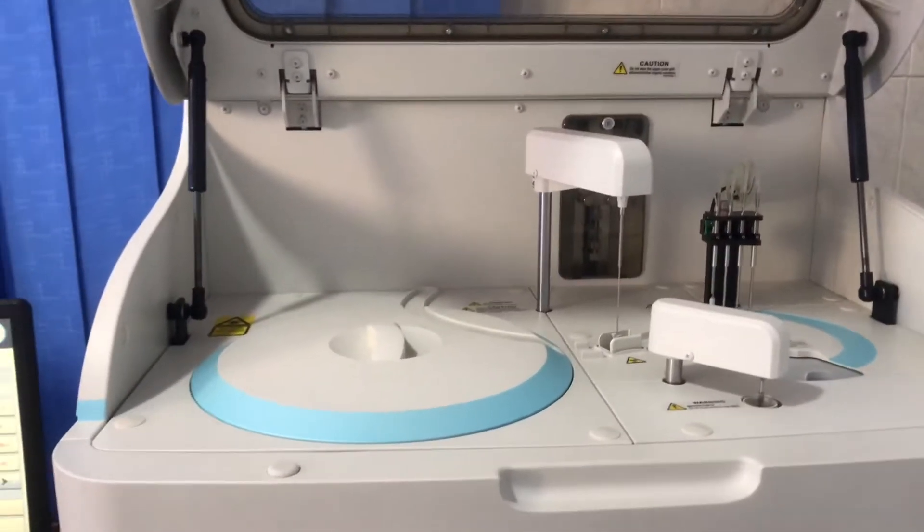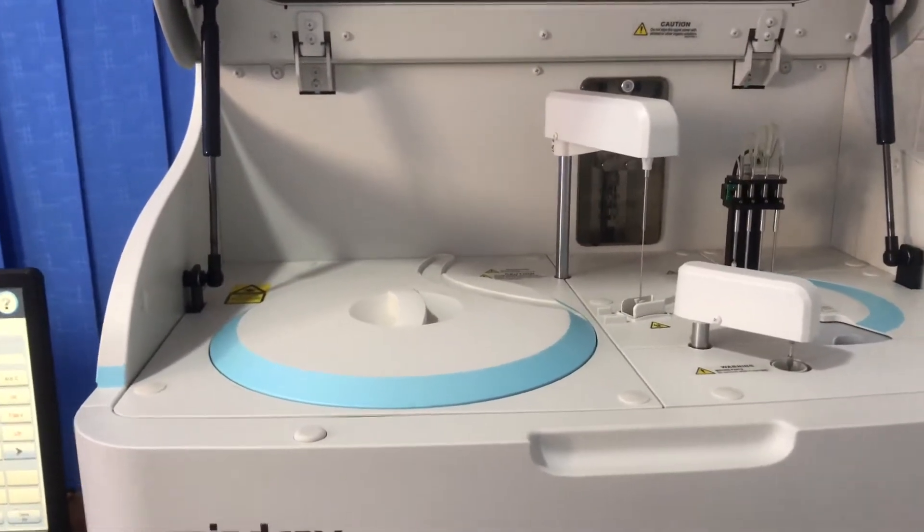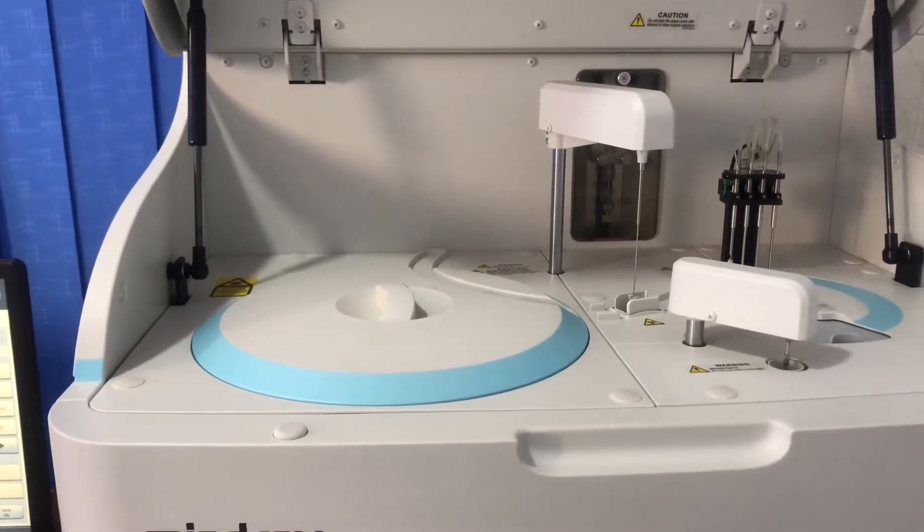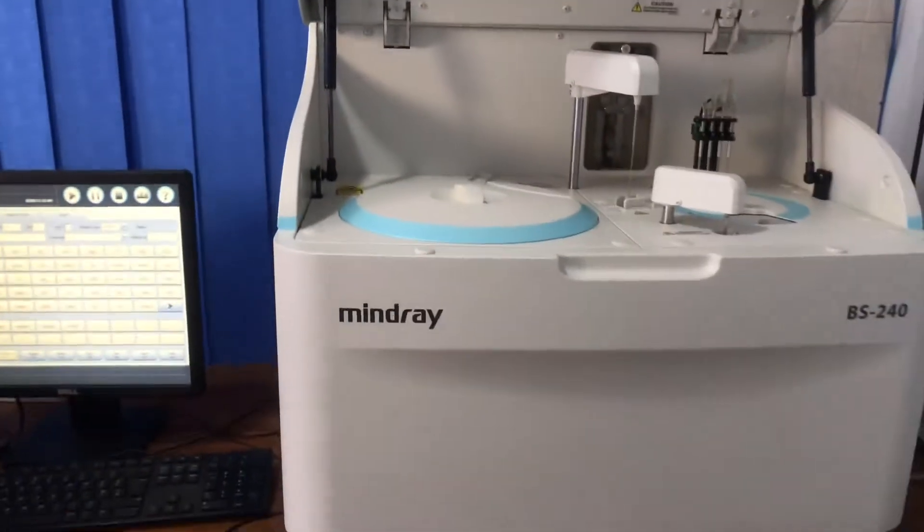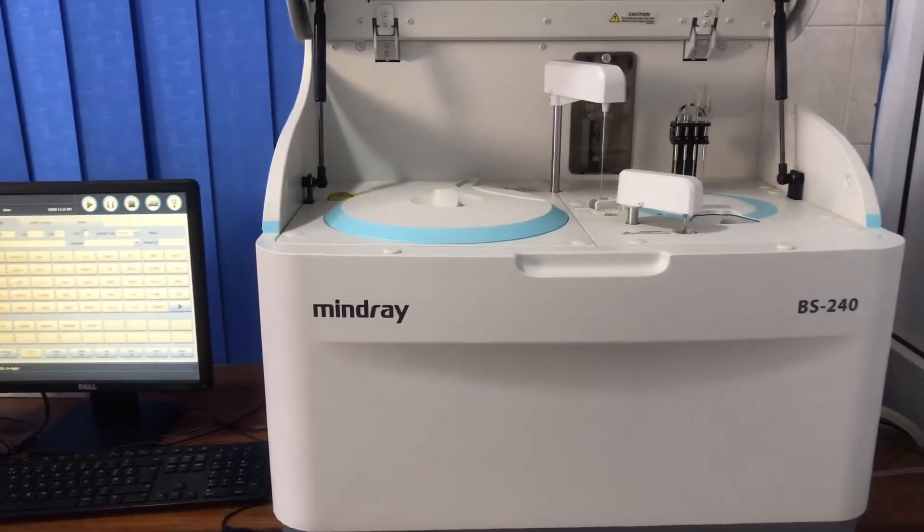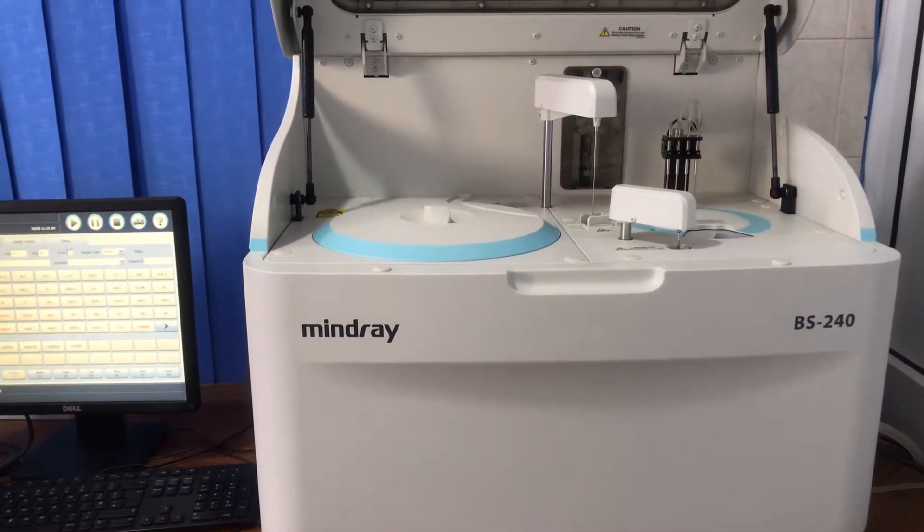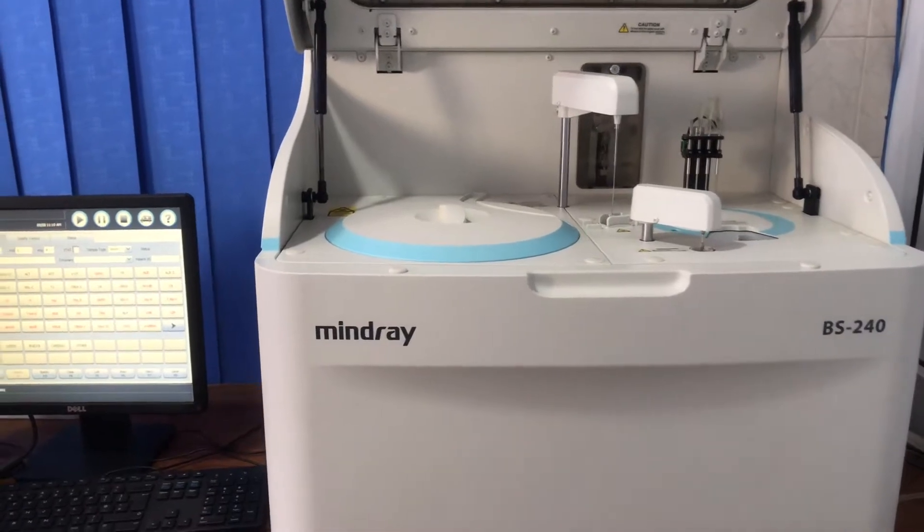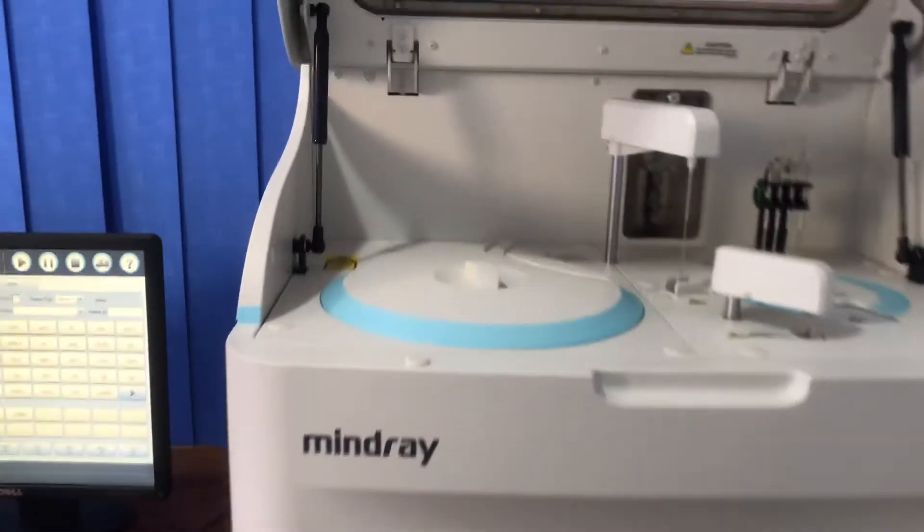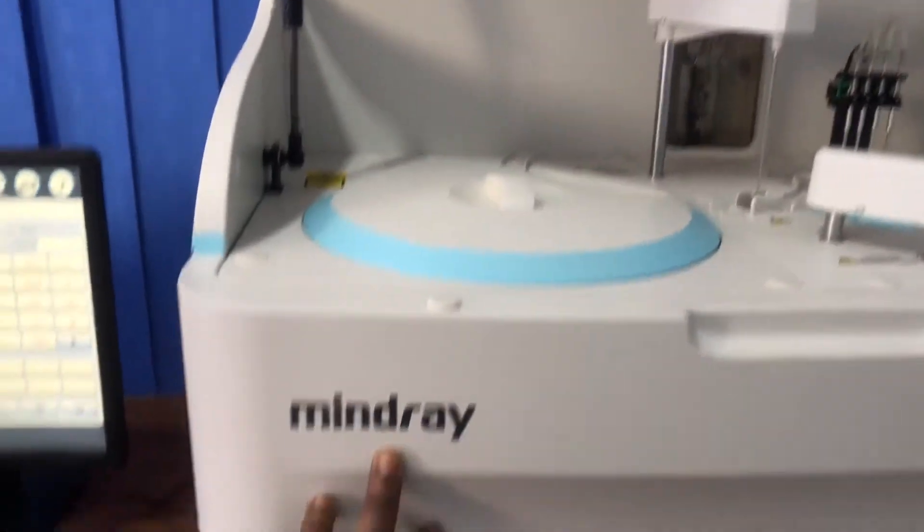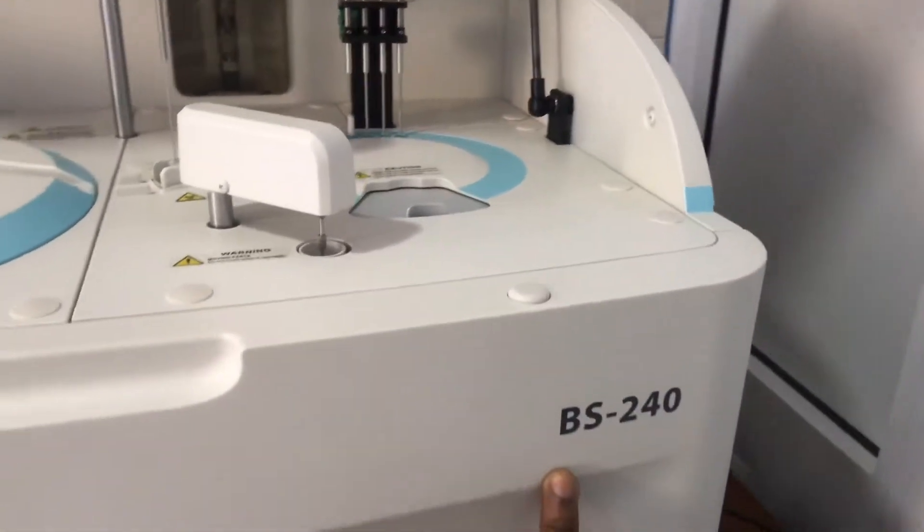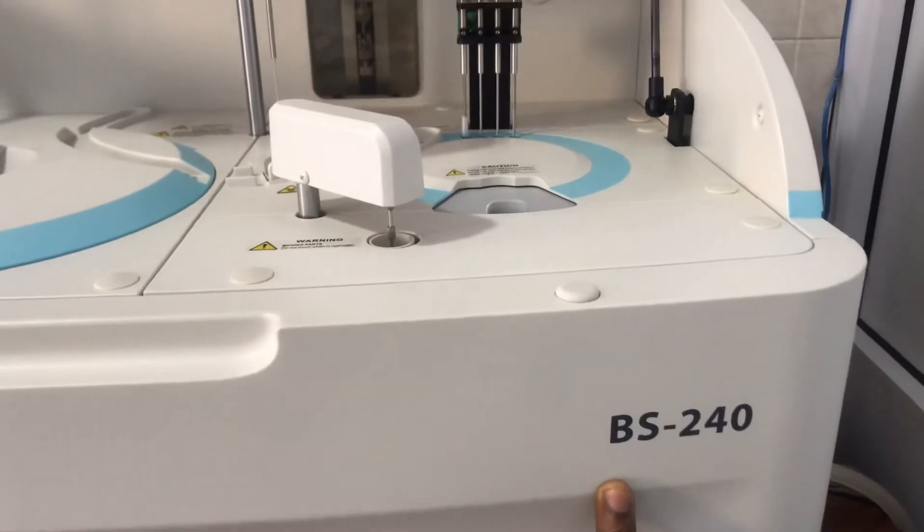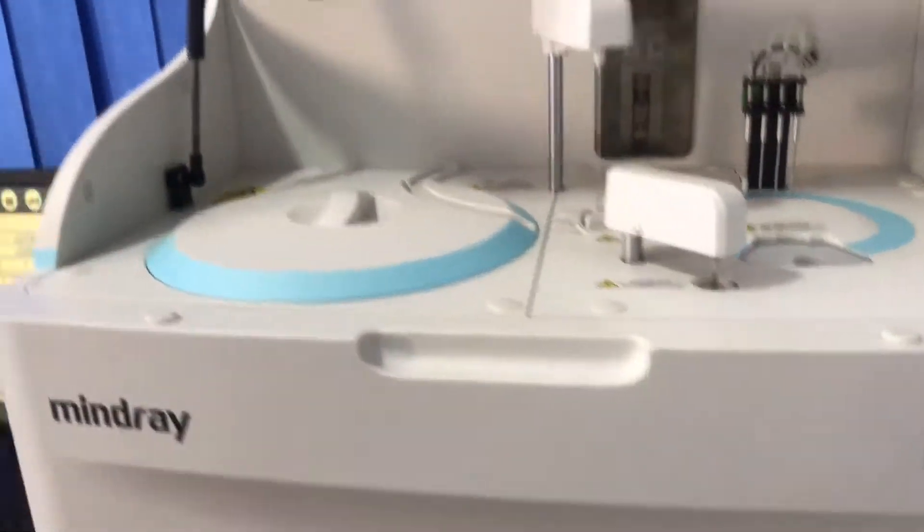Hello and welcome to Prime Care Medical Center Laboratory. In this video we'll be learning about the biochemistry analyzer and how it works. This machine was manufactured by Mindray and this is the BS-240 model. So basically, this is the analyzing unit.